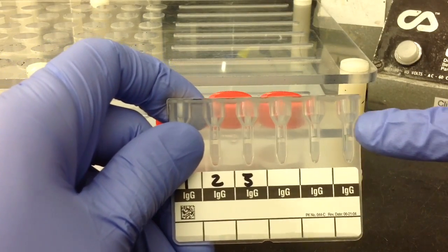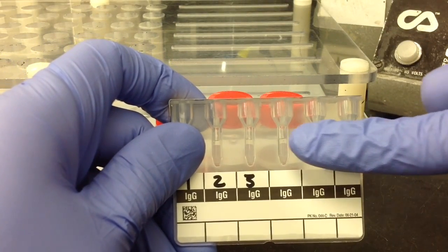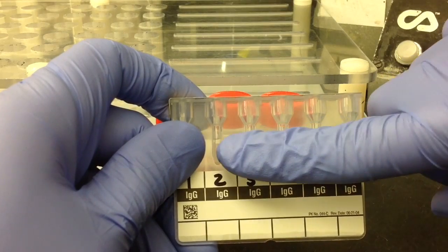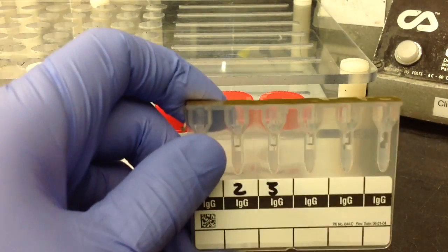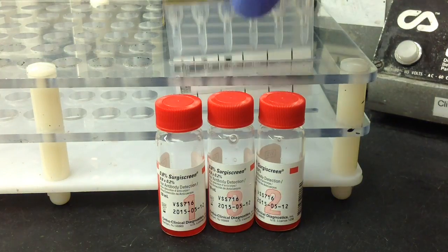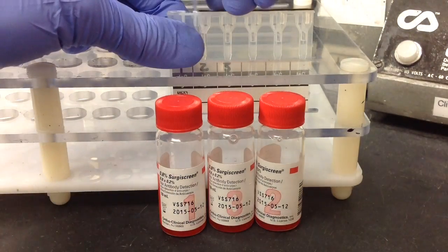It's important to note before you use the card that the liquid portion needs to be above the gel portion. Sometimes this can get disturbed in shipping and you can get that back into the right position by centrifuging it.